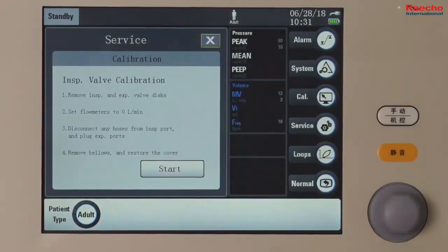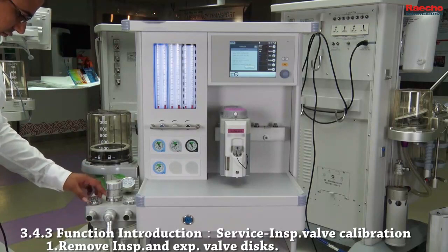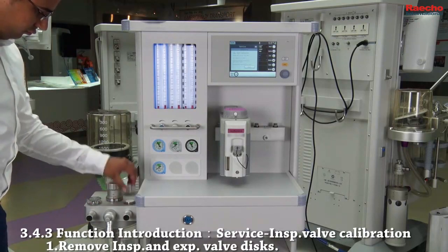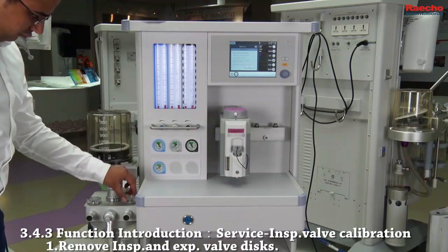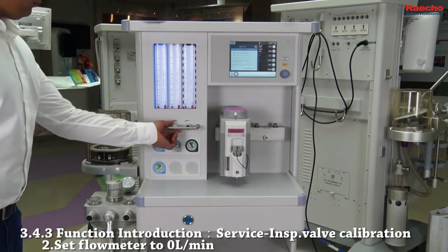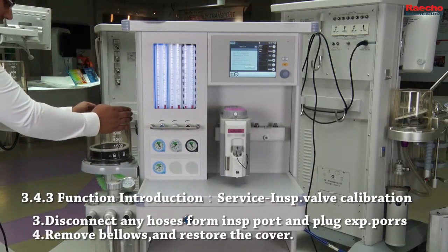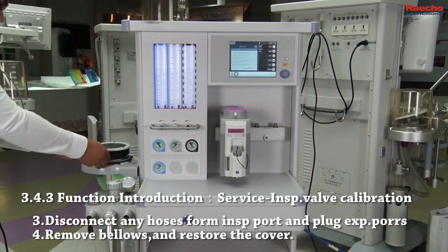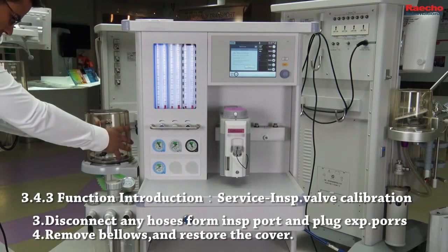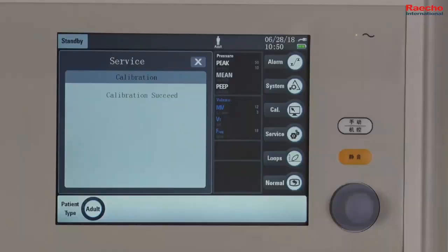Press here for inspiratory valve. Step 1. Remove inspiratory and expiratory valve discs. Step 2. Set all flow meters to 0 liters per minute. Step 3. Disconnect any hoses from inspiratory port and make sure to plug the expiratory port. Step 4. Remove bellows and restore the cover. Press start. Succeed.